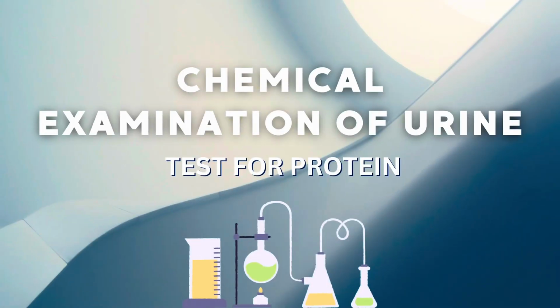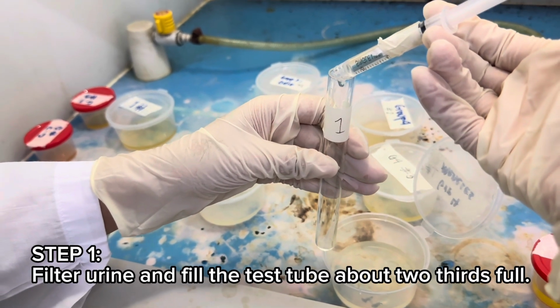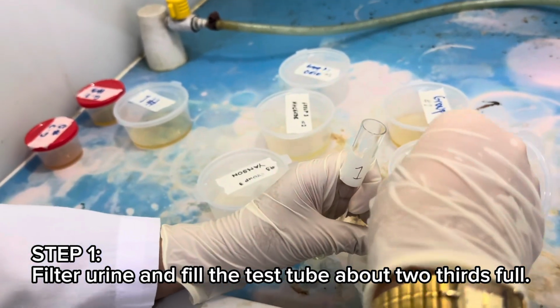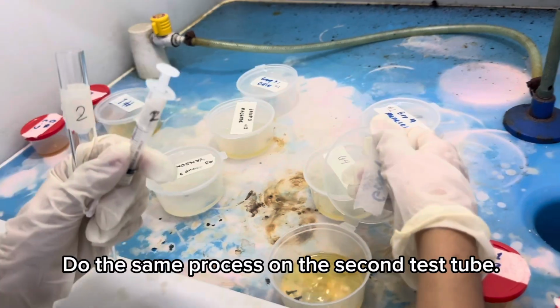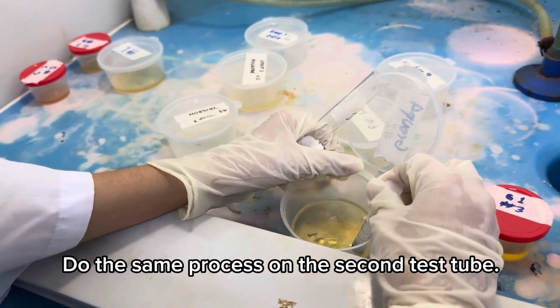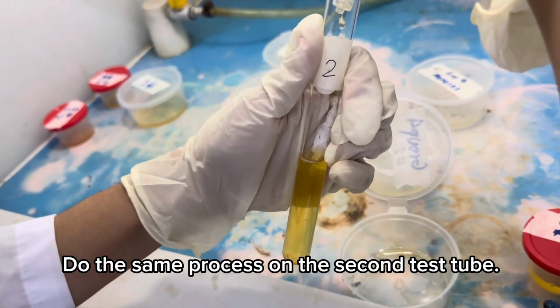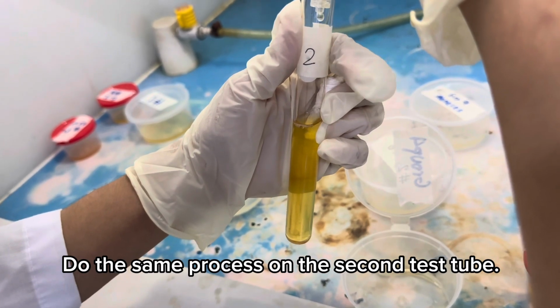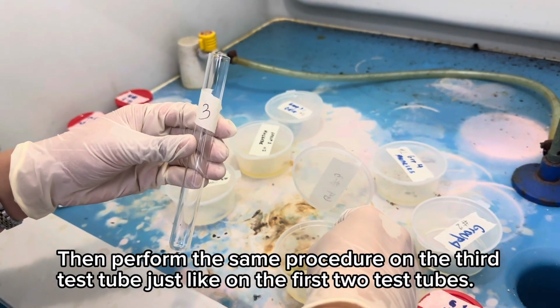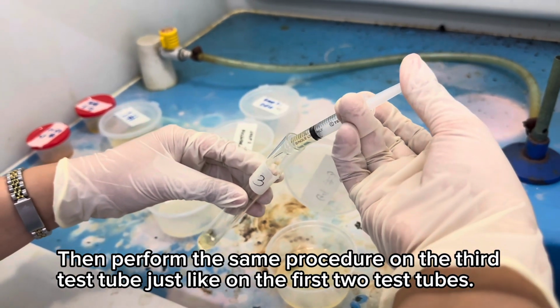Lastly, the chemical examination of urine. Test for protein. Step 1. Filter urine and fill the test tube about 2/3 full. Do the same process on the second test tube. Then perform the same procedure on the third test tube just like on the first 2 test tubes.